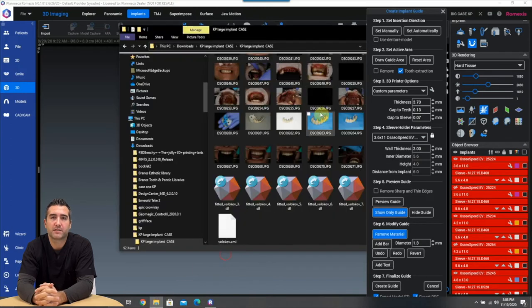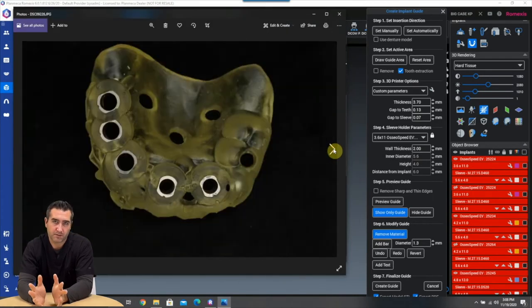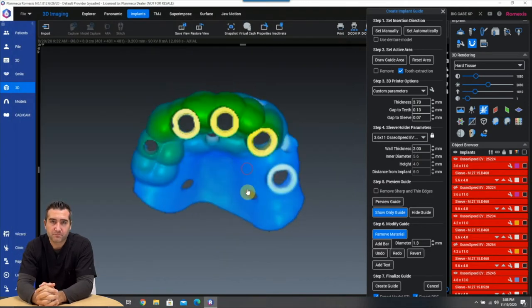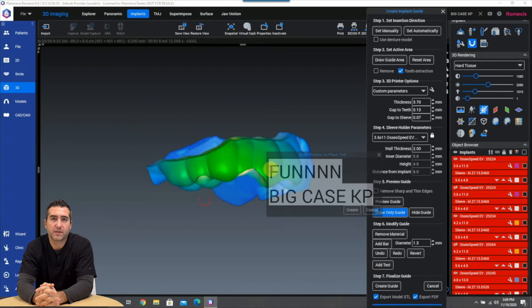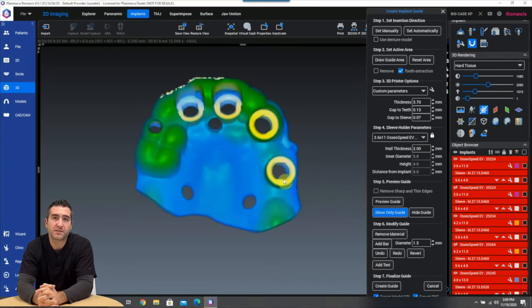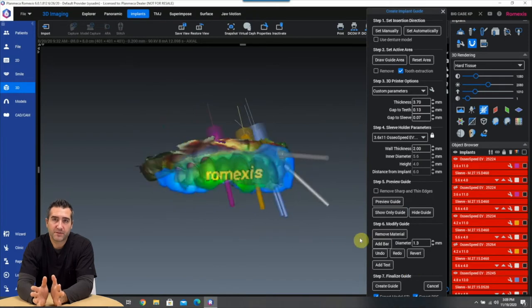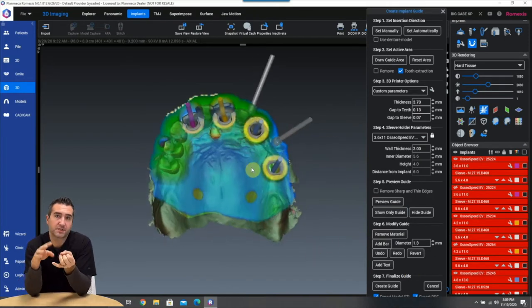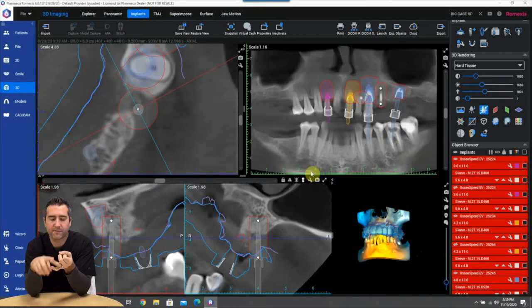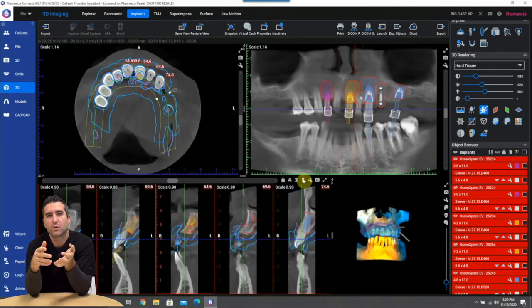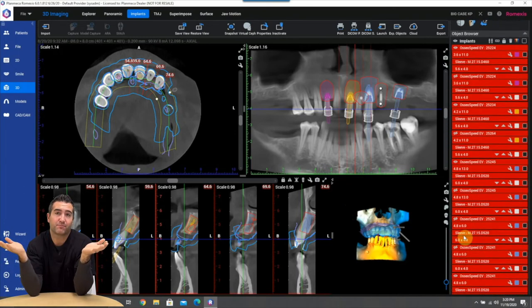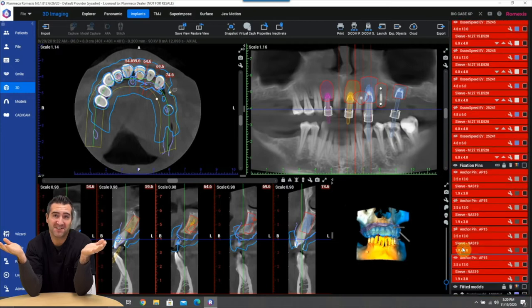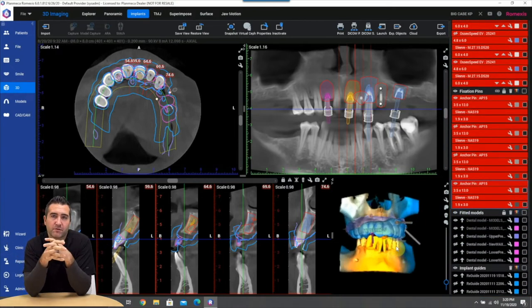So now what we need to do, this is the surgical guide that's what it looks like printed, add a little hole for verify seating on the teeth as well. Those holes in the palate also verify seating in the soft tissue so you can see everything renders beautifully. Now we spent all this time, we got our implants just the way we want them, we did our wax up in perfect occlusion and the smile is perfect with it. What are we going to do with all this information? It's worthless if we just don't do anything with the information. Some systems are completely closed and you can't do anything.